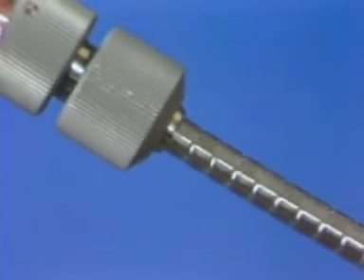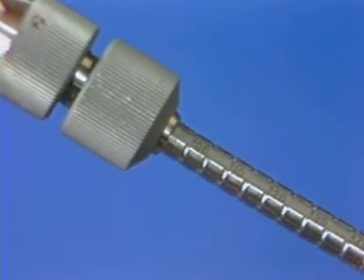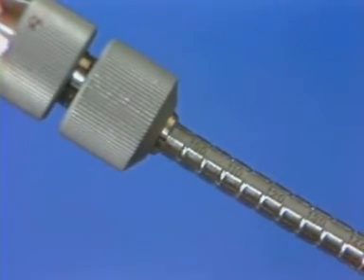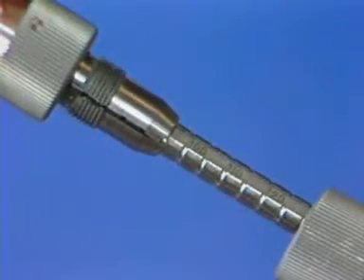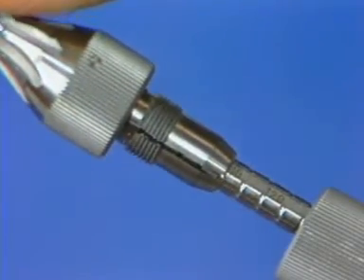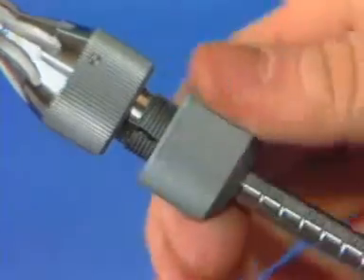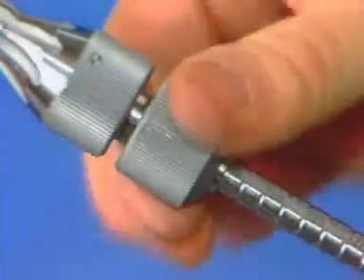Behind the drill connection is a millimeter scale. The sliding knot is loosened and the desired drill depth of 110 millimeters is set and the nut is tightened. The setting of 110 millimeters can be checked in the tightened position if desired.